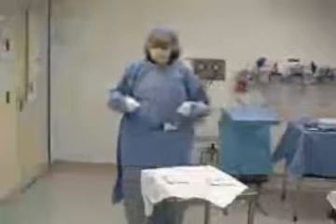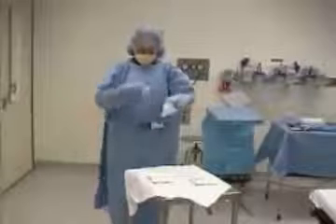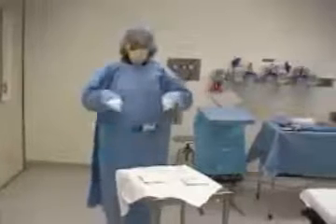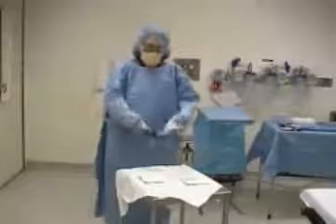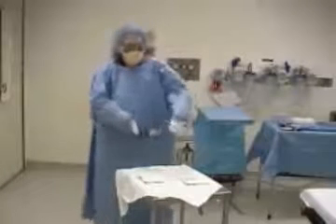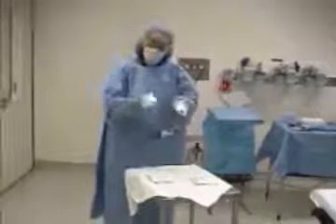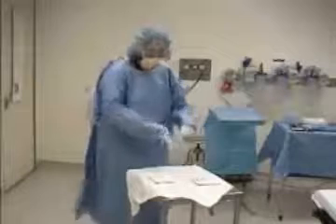Once your waist has been tied in, you may not be tied around the neck because you need to keep your hands in front of you in an imaginary box. Think of it as nipples to navel and not too much on the side. Keep your hands in front of you so you can see what you're doing, and you want to keep your fingers above the white cuff. You need to consider the white cuff as being unsterile once the gloves go on.